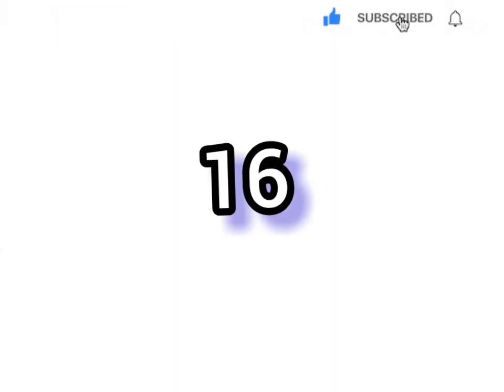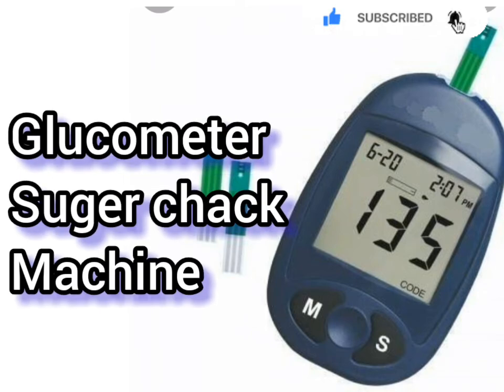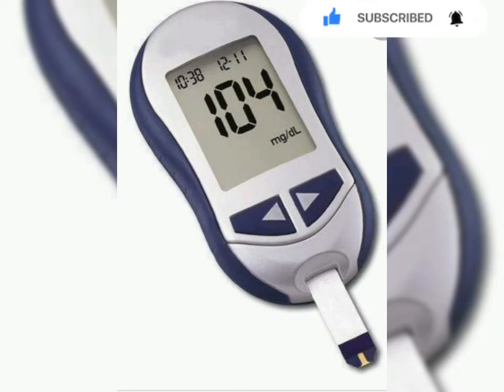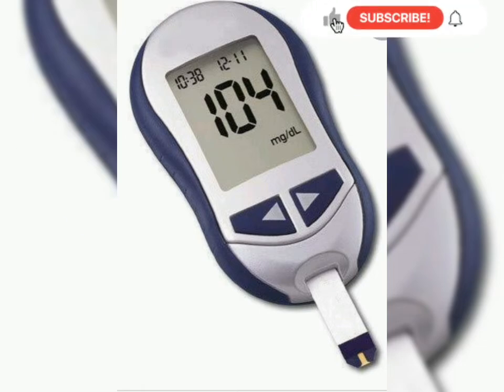Number sixteen: the glucometer is most important. Using the glucometer, we can easily check the blood glucose level of any patient at any time at the bedside.